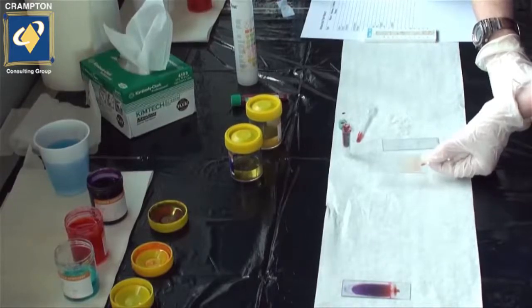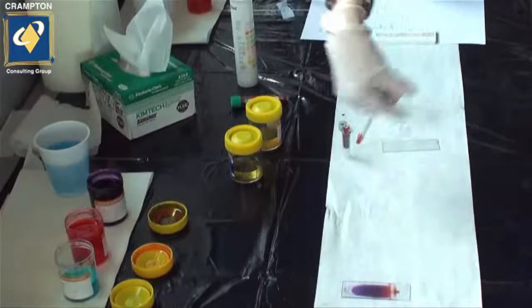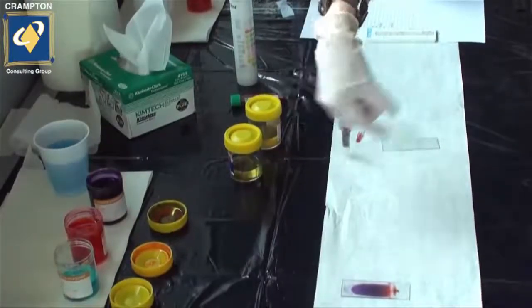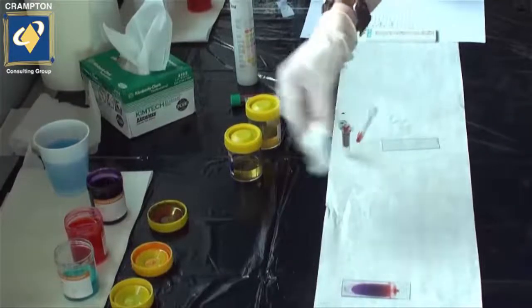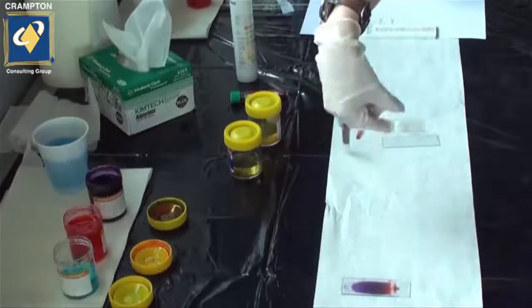The slide is dried quickly using air so that we can adequately fix it, and then stain the slide using diff-quick. We are then able to perform a blood smear examination under the microscope.